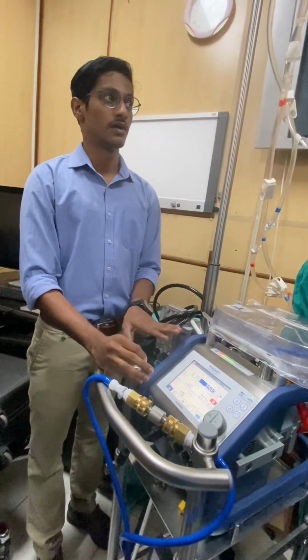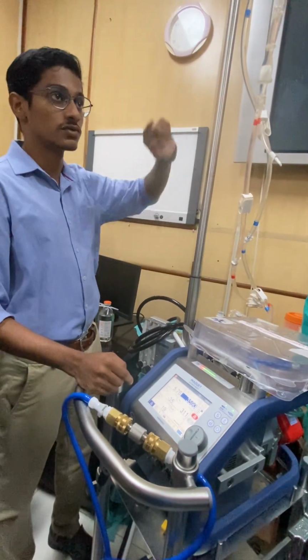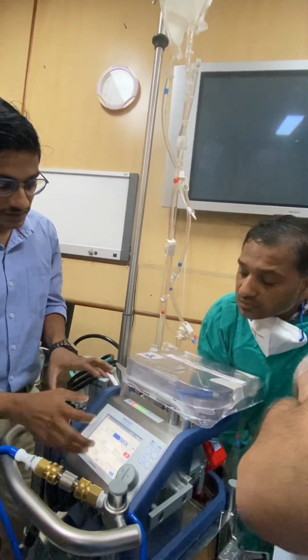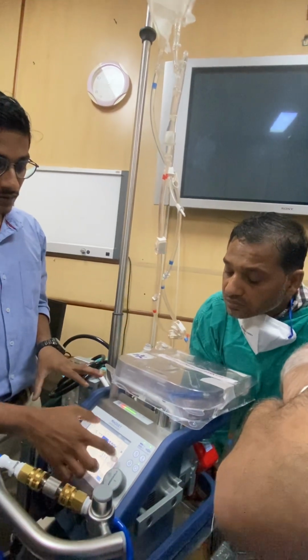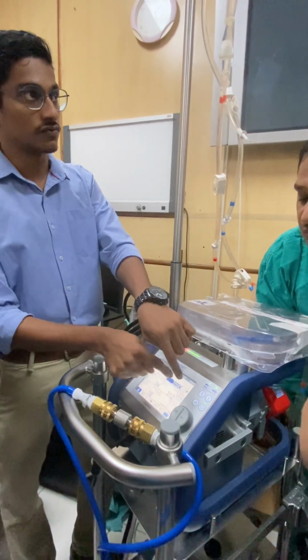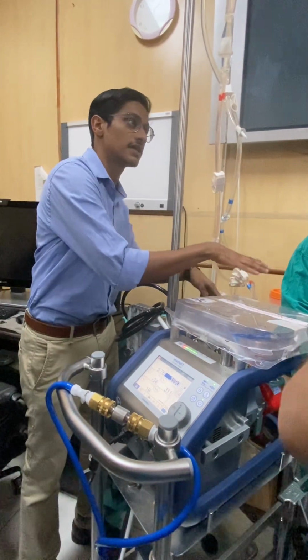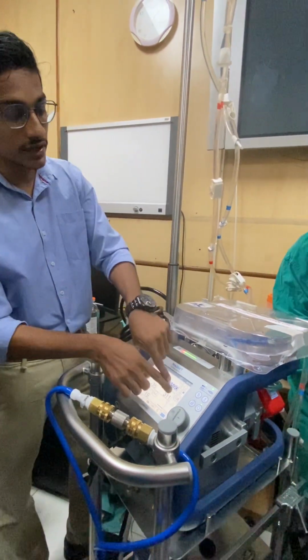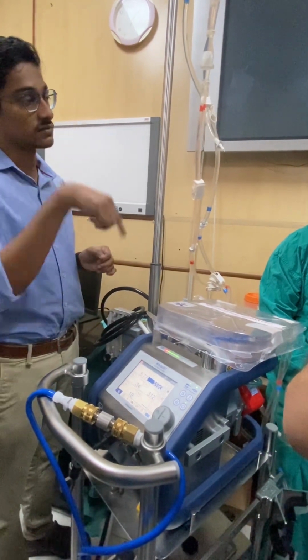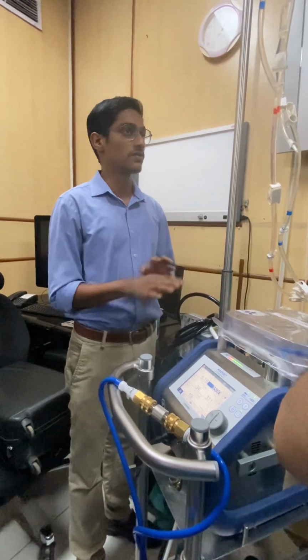user interface. During all this time we were talking, this whole system was circulating. Now let's see if there is any air in the system. If you remove the override, we had an override. When it was overridden, it will show no alarms. Even if the bubble sensors are connected, it will show no alarm. Now we have removed the override. Now both the sensors are active. It is circulating, and you can see it is giving no alarm. That means there is no air in the circuit.